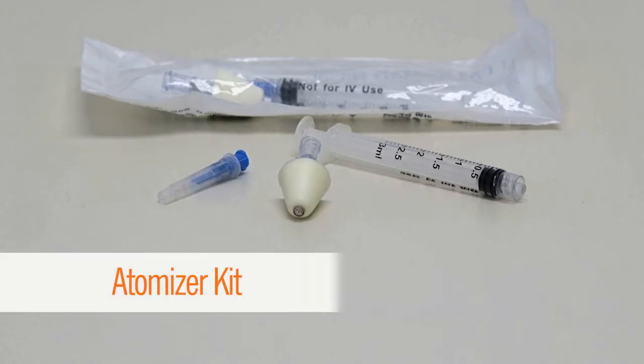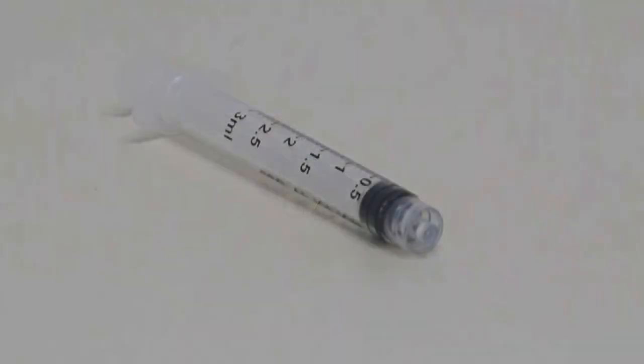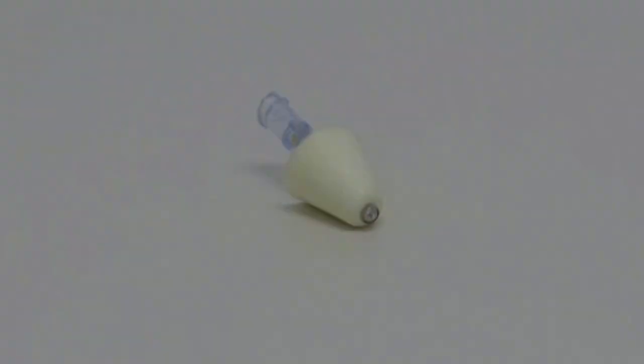An atomizer kit to deliver the medication. This kit includes a syringe, a blunt tip needle, and the atomizer to deliver the medication intranasally or in the nose.